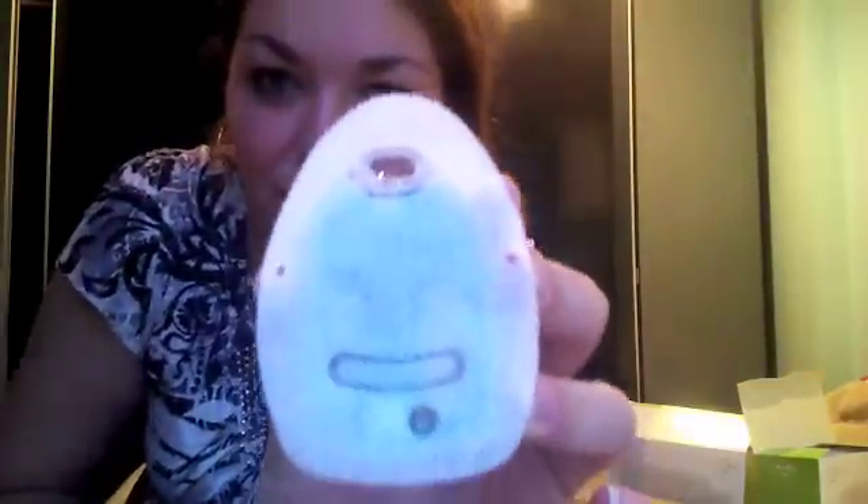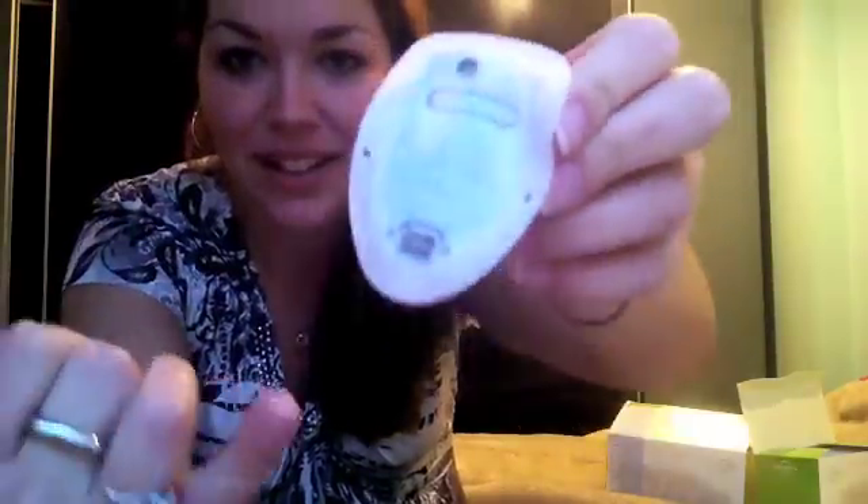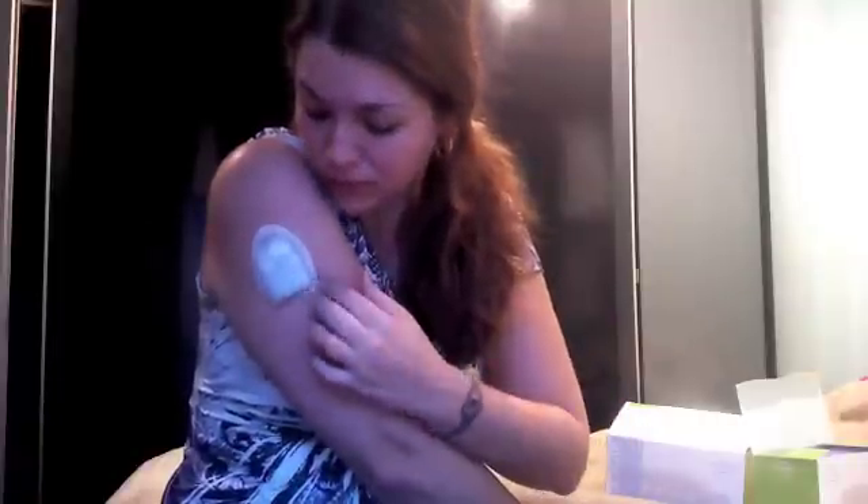So as you can see, this is the sticky part — clearly the sticky part. And there's no needle here; the needle's going to come out in a minute once it's ready to go, and that goes right into me. Now it's going to say start to insert cannula. The cannula is the little plastic piece that you saw before. So I'm going to hit start — it's going to beep a couple of times. I just pinch the skin so it makes sure it goes in. And now it's inserted.